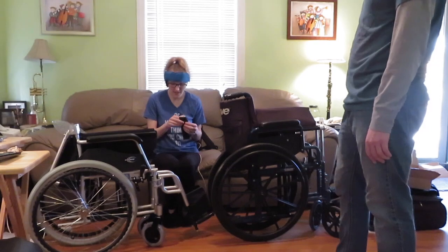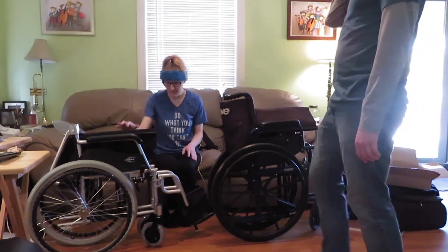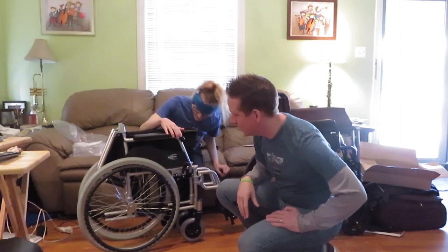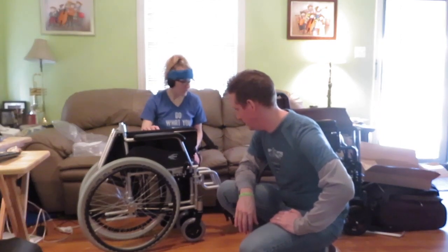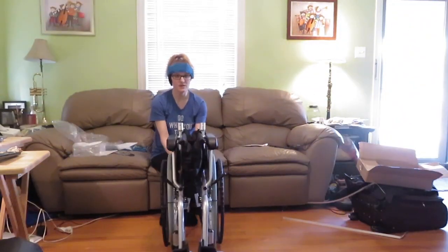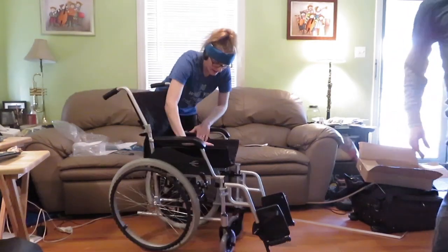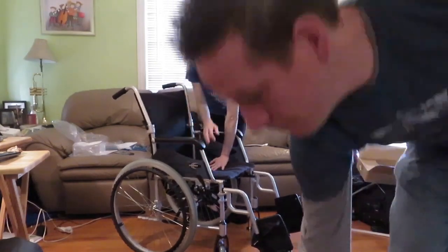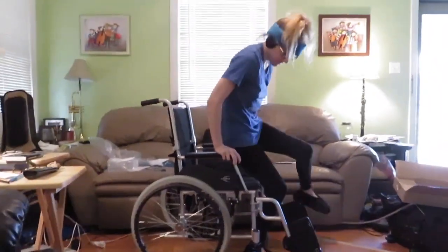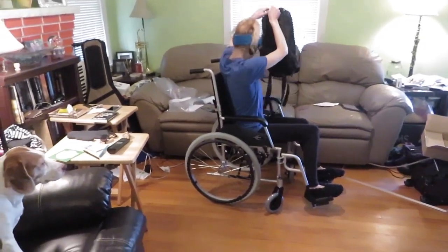So it's the Karman LT-980. I just noticed something about the wheels — they've got metal spokes that make them look like bicycle tires. I just think it's a neat look. Let's get it back ready to go and open it up. Mom should not have trouble with this one. Make sure you snap it into place. Okay, so I'm getting in. Anyone watching this video can see that the maid is off duty today — it's quite messy.